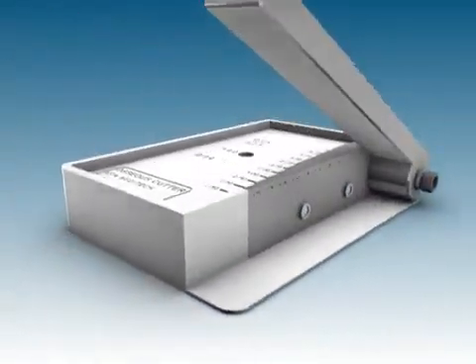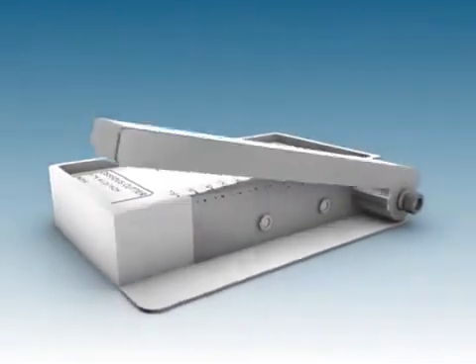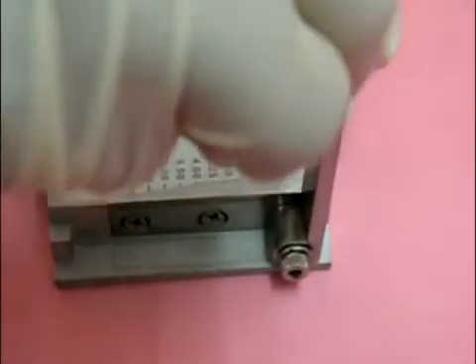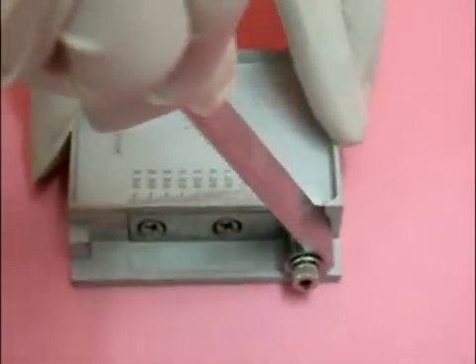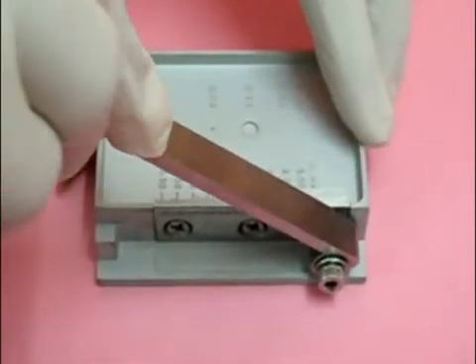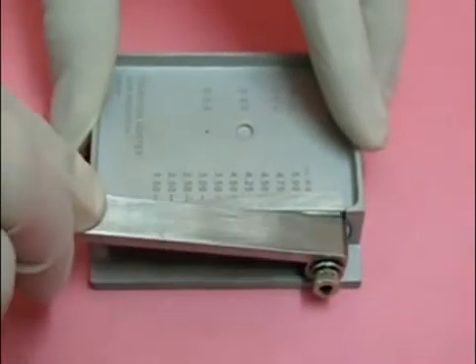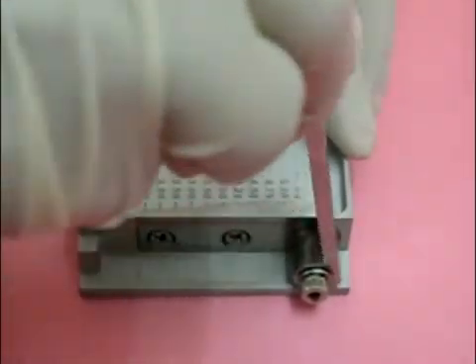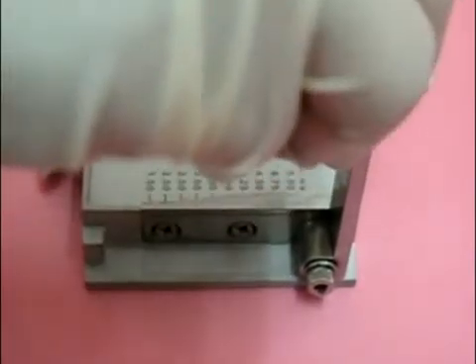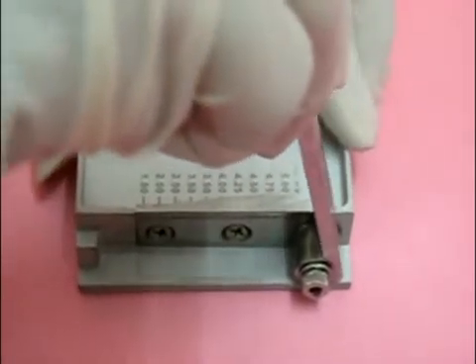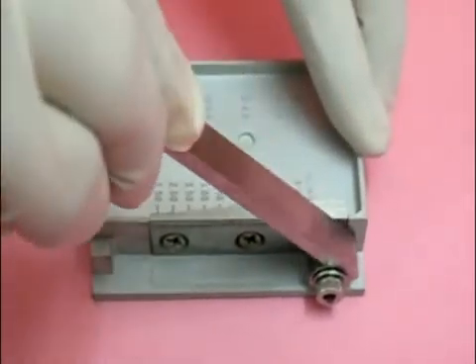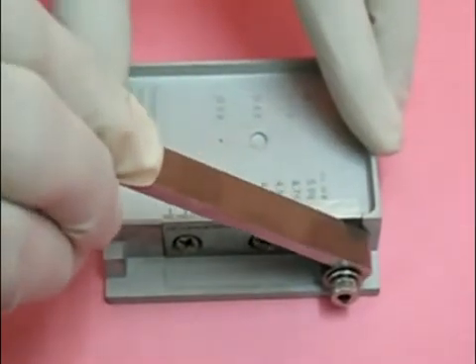The cutting blade is in the form of a movable lever. The excess length of the prosthesis is cut by bringing down the cutting blade.